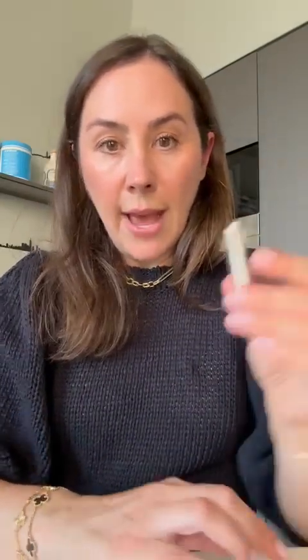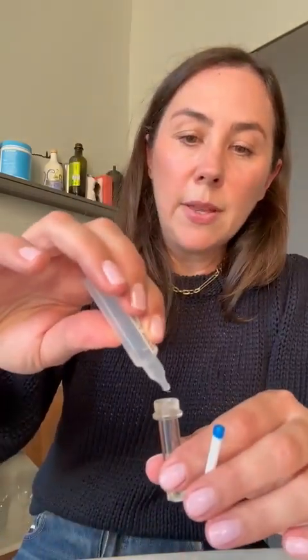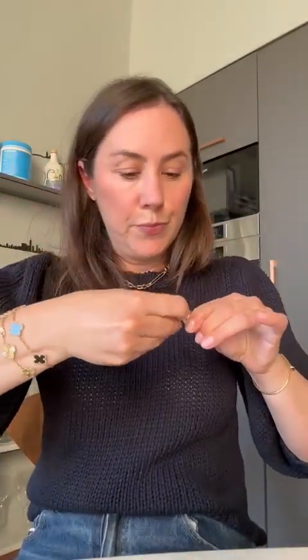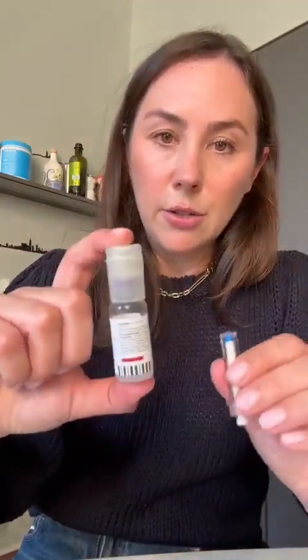Now I have the syringe and I'm going to take out the piece and fill it with some saline solution to clean it out. I'm going to take this and push it through — that just cleans out the syringe so I can use it again. I'll pull the plunger out one more time just to make sure there's no air in there, then push it back in. Now this is ready to put into the insulin to draw the dose.